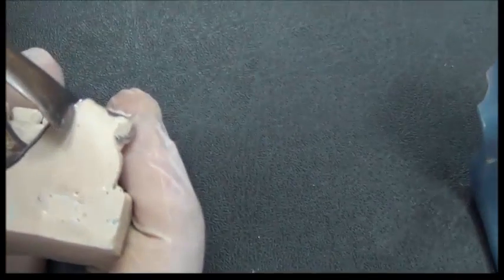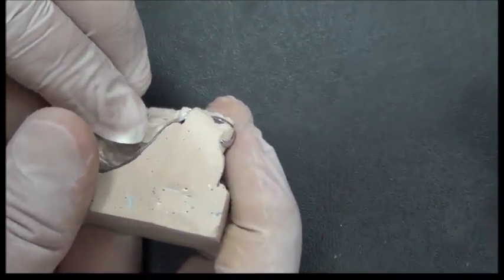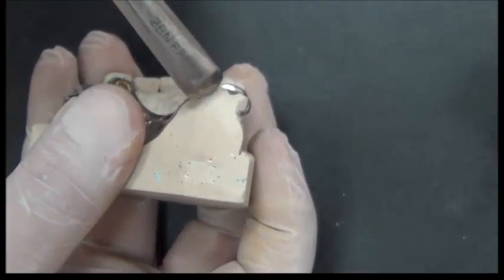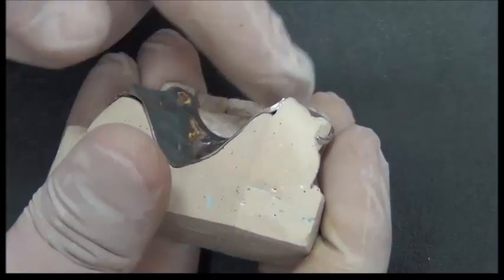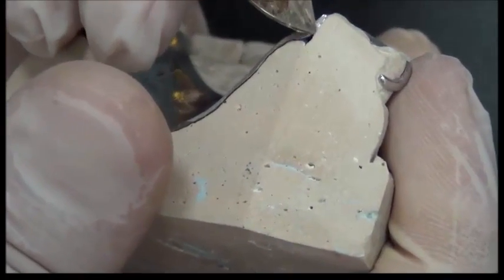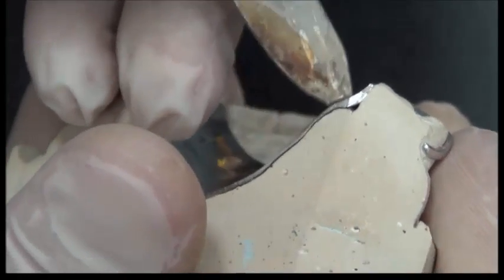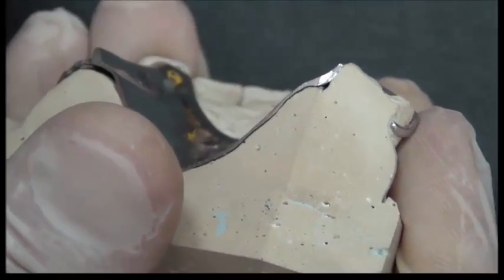But please notice that in this final metal RPD, the gingiva here is protected from the intermittent forces during occlusion and during function by the area that was blocked out and eliminated during metal fabrication. So the final metal now is away from the gingival margin, protecting it.